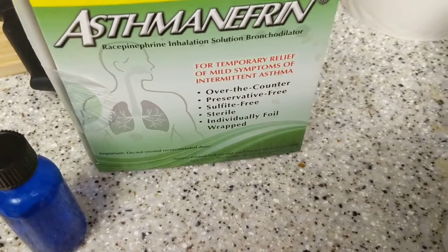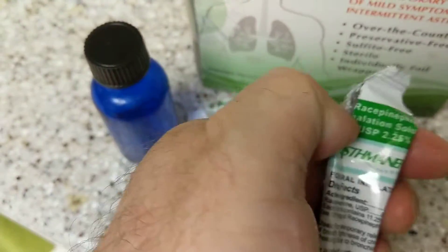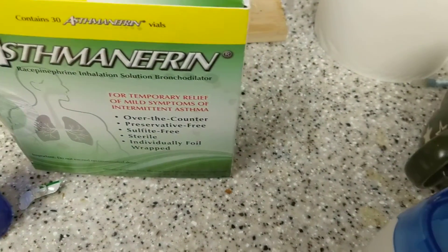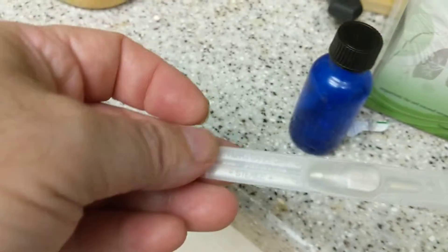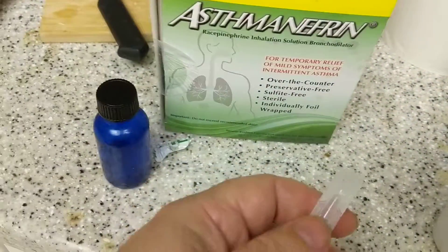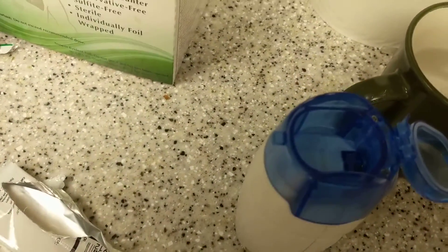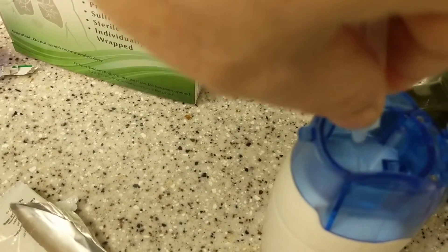It comes in this foil packet, and inside there's an individual dosing vial. It's 0.5 ml. I'll squeeze that out into the reservoir.